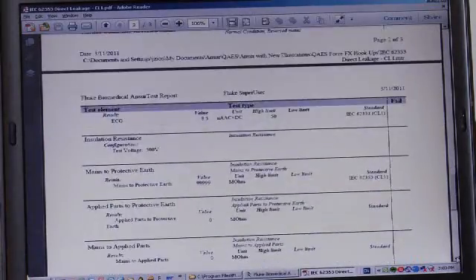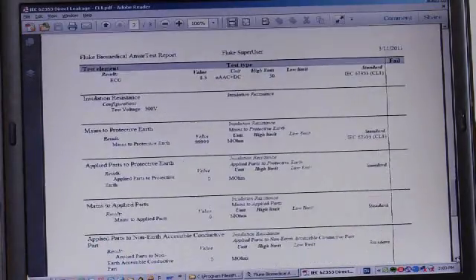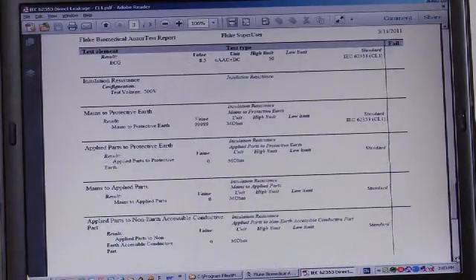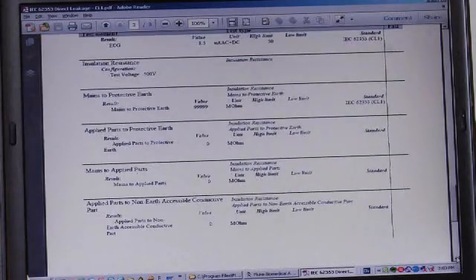Scrolling to the last page, we can see the balance of the tests.